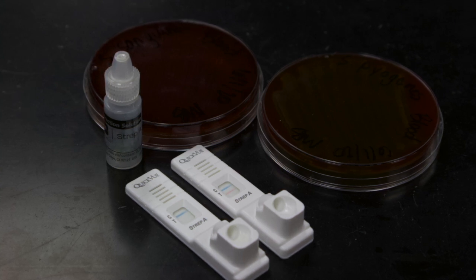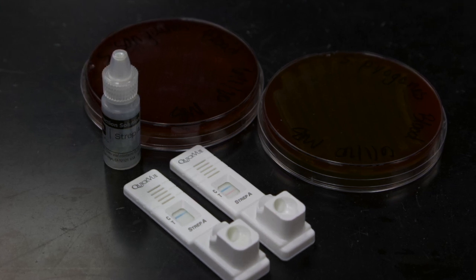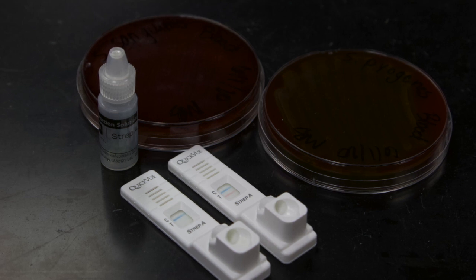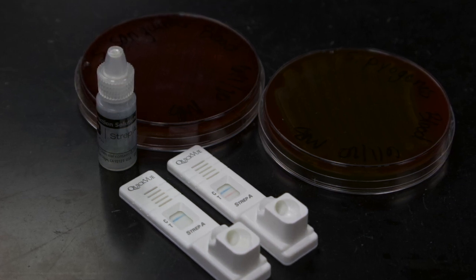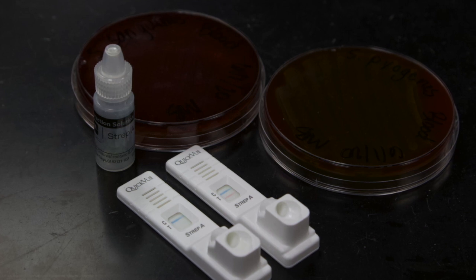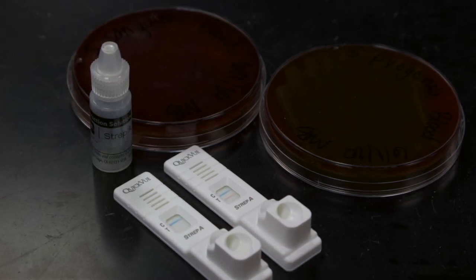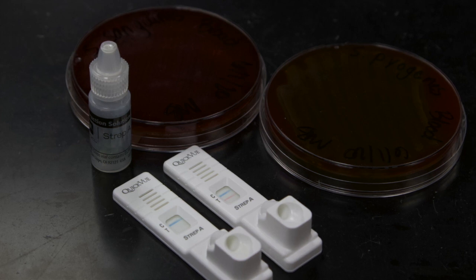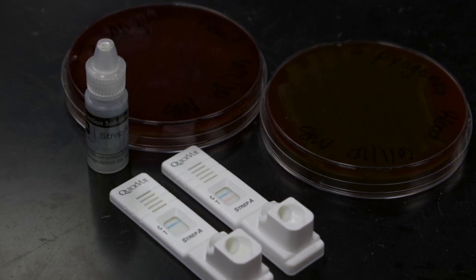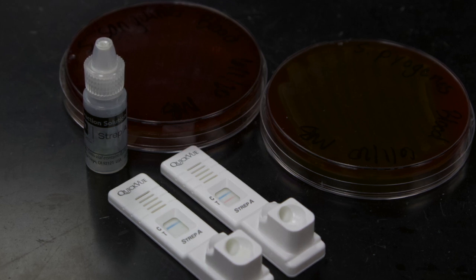The rapid immunological assay in the form of a lateral flow device can be used for more than just the presence or absence of beta hemolytic streptococci. Many doctors' offices use rapid tests for a preliminary type of testing. A positive result on a preliminary test allows the healthcare provider to begin a course of treatment while waiting for confirmation from the clinical laboratory with a confirmatory test.